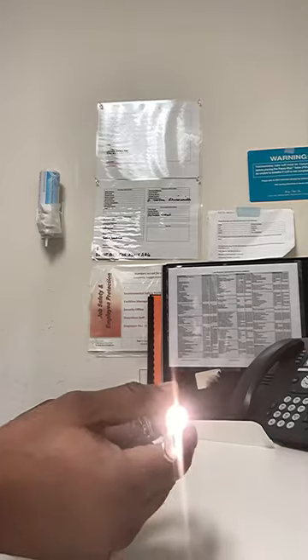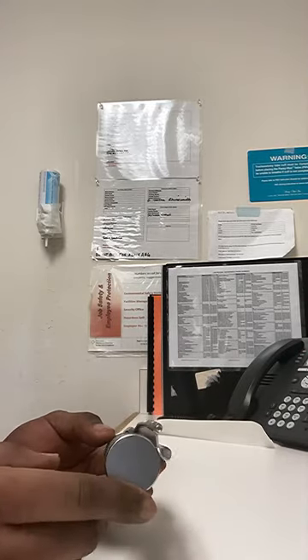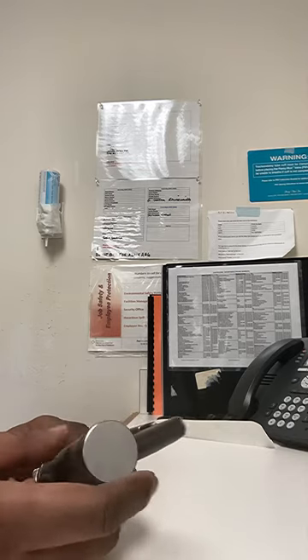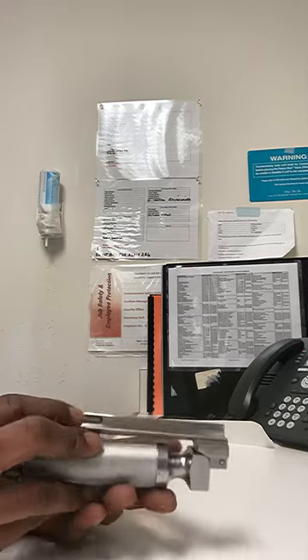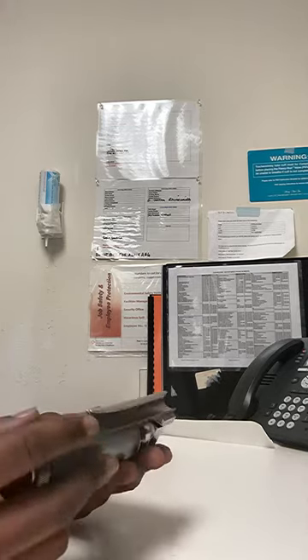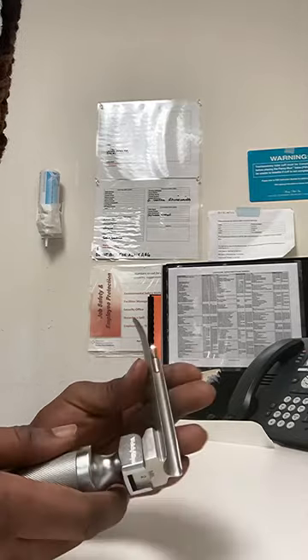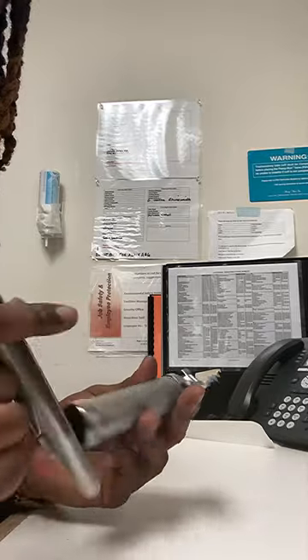Many physicians nowadays use King blade laryngoscopes that already have a built-in camera. You might not see these used as frequently, but these are bread and butter for intubation. It's good to know how to assemble, disassemble, check the light, check the batteries — all of that. Make sure it's working effectively.